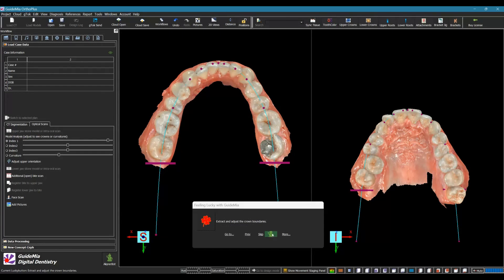Before clicking the Lucky Button, adjust the bars so they're close to the last posterior teeth for treatment planning. The boundaries are the key to tooth segmentation — they don't have to completely follow actual tooth boundaries, as the software will make adjustments especially at the interproximal area. However, the boundary curves must represent the curvature changes of the tooth boundaries. This is the AlignerBot button — when the data is ready, this button will automatically finish all required planning and design. You can just watch it finish. For demo purposes, we'll use this button to continue the workflow.